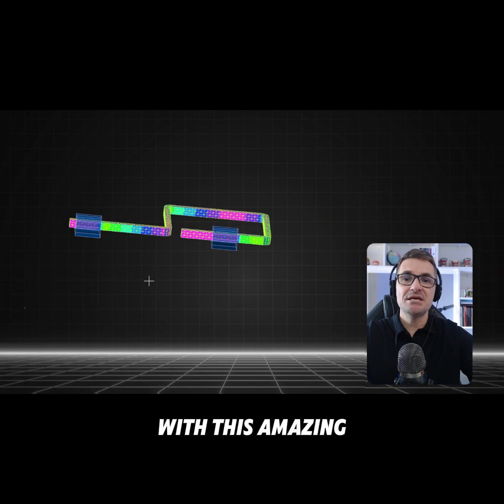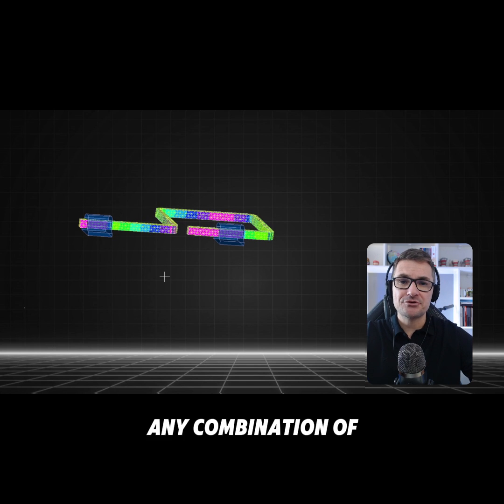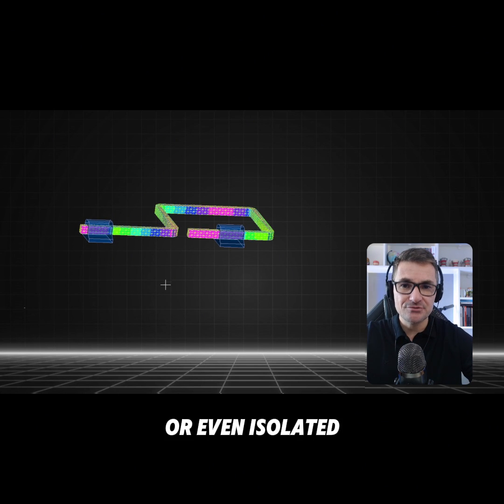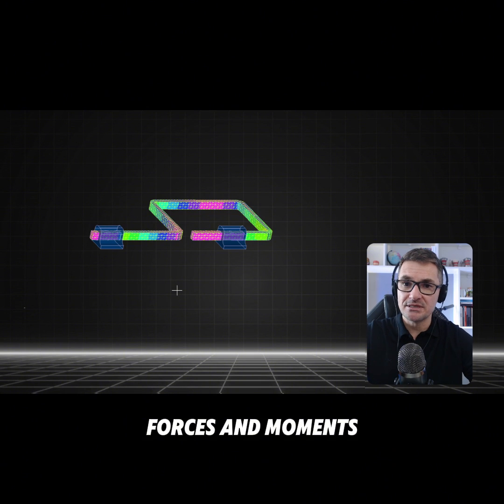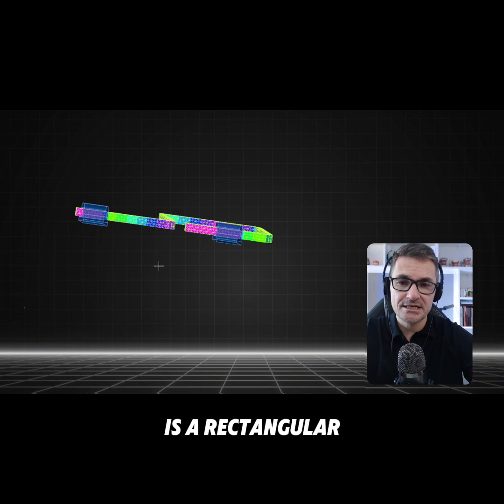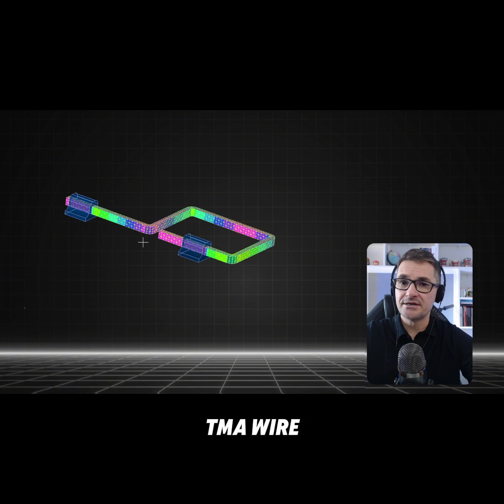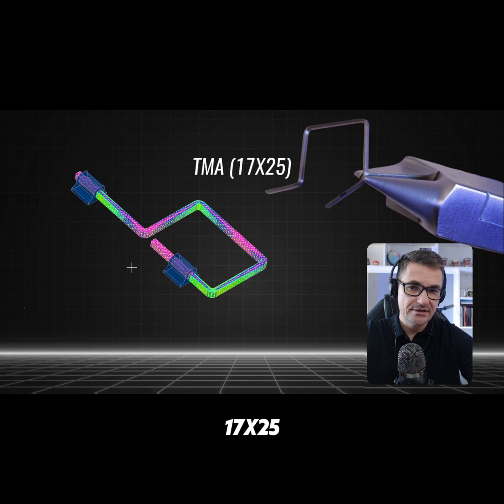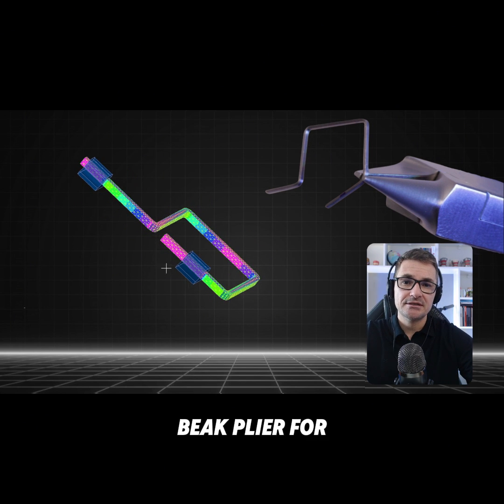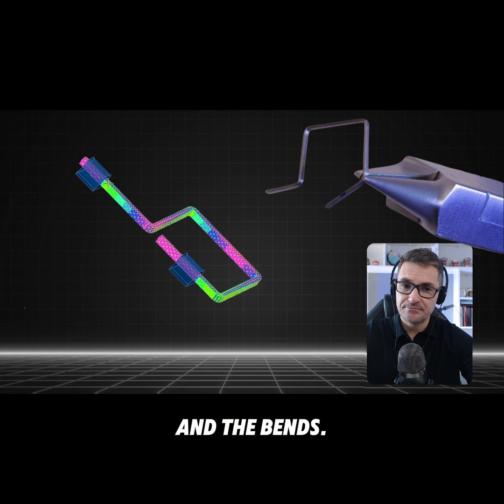With this amazing tool, we can apply any combination of forces and moments, or even isolated forces and moments. The ideal wire for this loop is a rectangular TMA wire, 17x25, and I recommend the bird beak plier for making the loop and the bends.